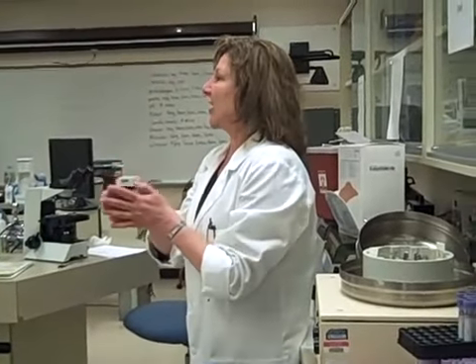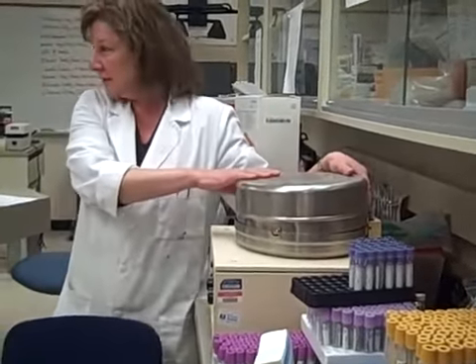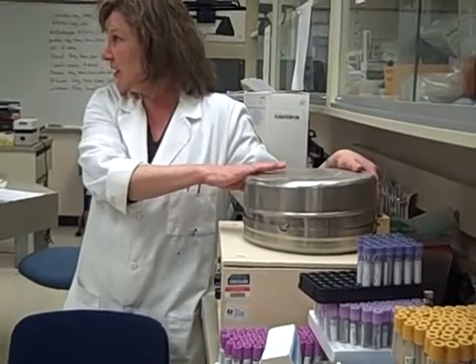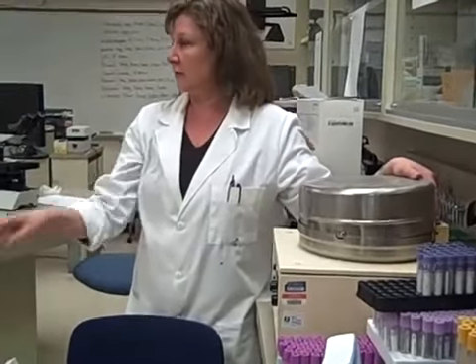Even if you have a very low count — like spinal fluids — the white count normally on spinal fluids in a healthy individual is zero to five, but you can do a 100-cell differential if you do a cytospin prep. So look at three of those today. There are always two cytospin preps made for each body fluid. You don't have to do a cytospin prep on your fluids today, just the hemocytometer.